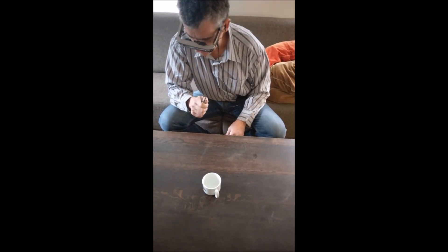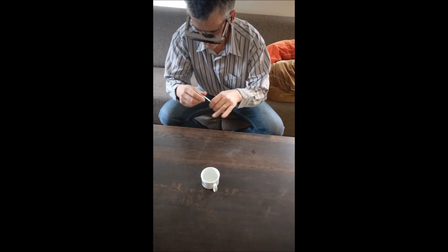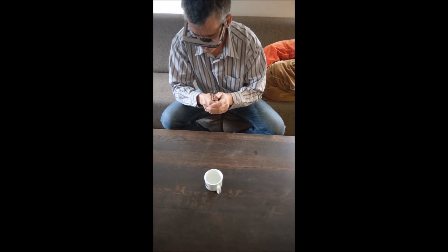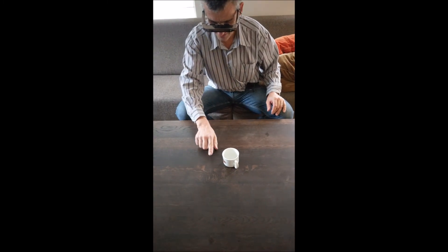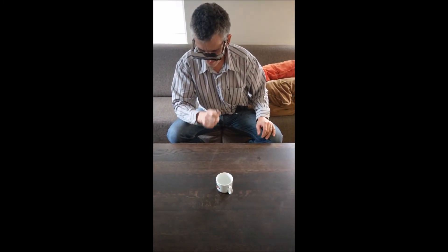It's interesting — it makes a noise where this fork is. If I hold it like this it doesn't, and like this it does. So for instance — it was a surprise to me — I will know exactly where the tines of the fork are and where they aren't, but I do have to hold it about here at this distance.